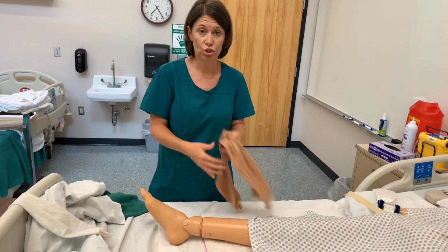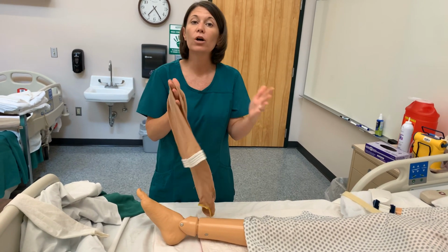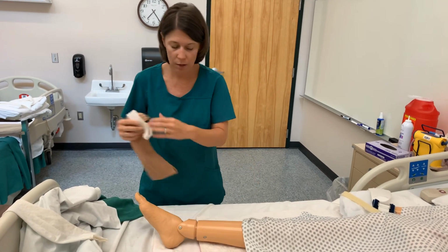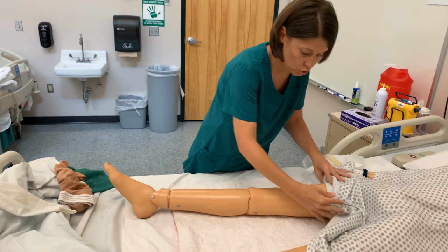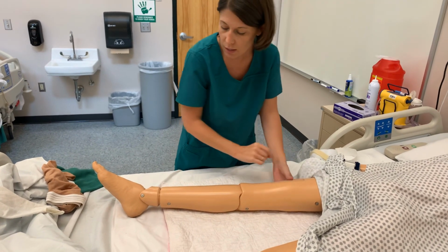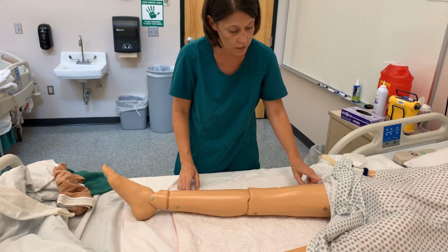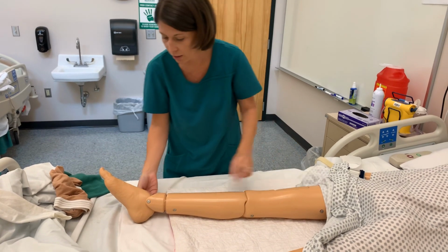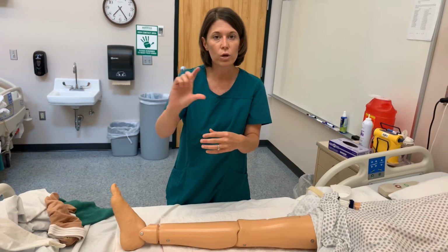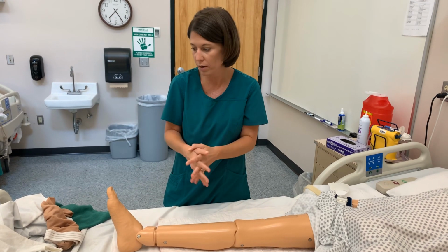When you get the packages that these come in, they will have sizing charts. And I will tell you, every company, that chart may vary some. So for example, for the thigh high, you would actually measure the circumference, that means how big around the thigh is. Then you need to measure around the calf area, the circumference. But then what is the distance from the thigh to the heel? Okay, so it'll have those instructions for you. And then once you get your measurements, you can decide, okay, they need a small, a regular, medium, or whatever the case may be.